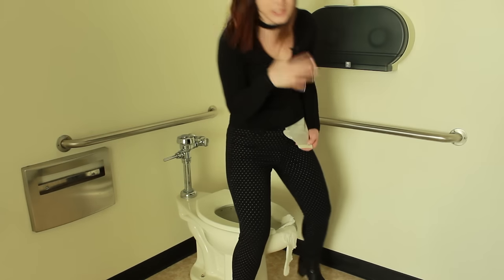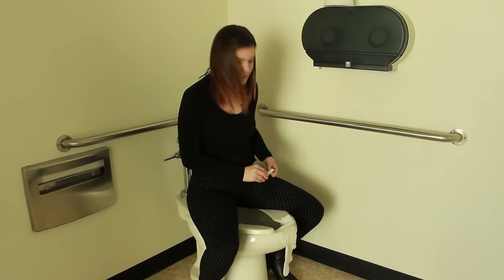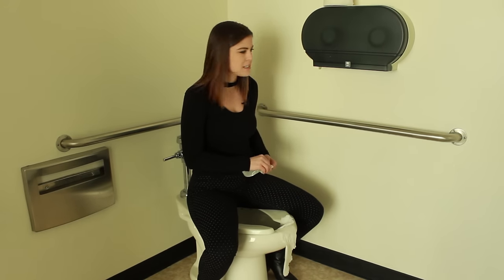And lastly, just normal sitting down. No matter what position you're in, emptying the ostomy pouch is the same.